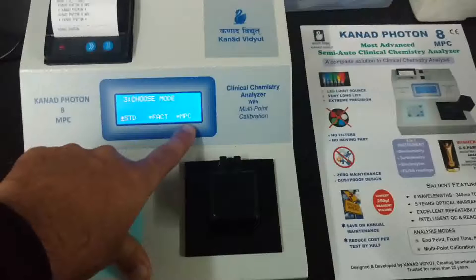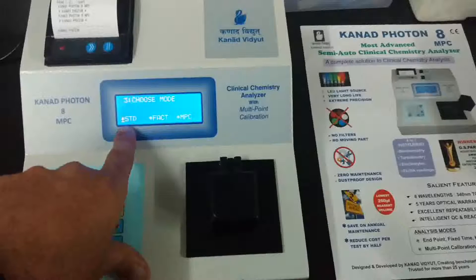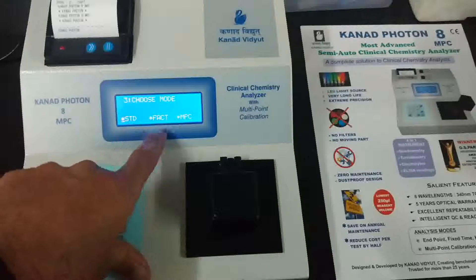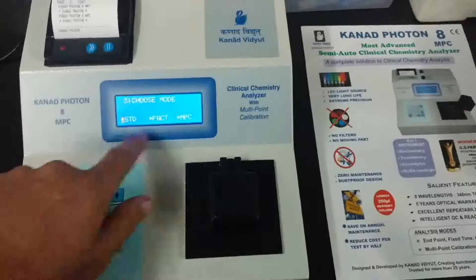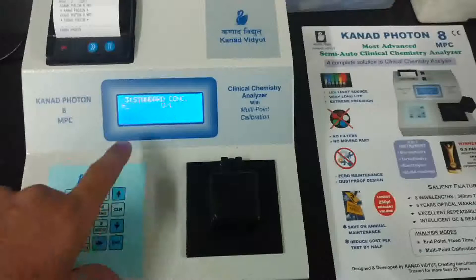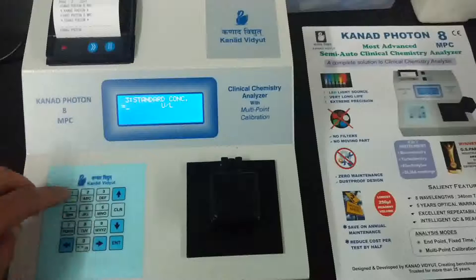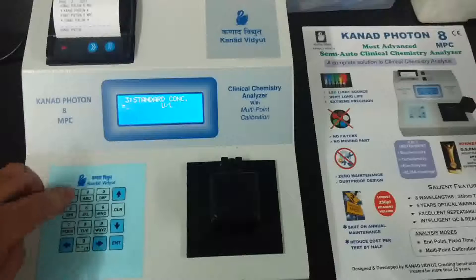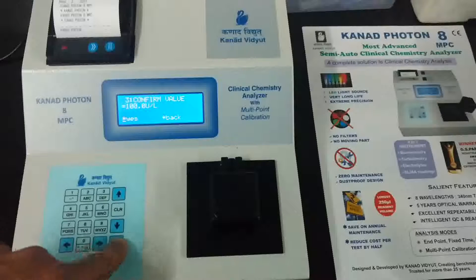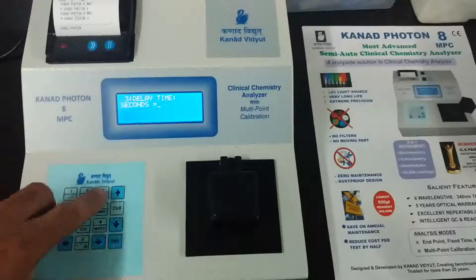Now choose the mode: standard, factor, or multi-point calibration. Multi-point calibration is for tests with multiple standards. For now, we will select the standard mode. In standard mode, enter your standard value — for example, if the standard is 100, enter 100 and confirm.